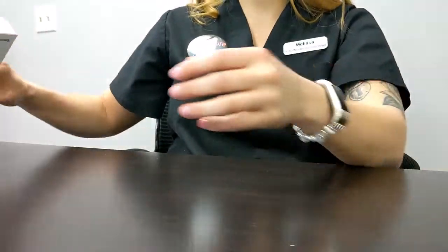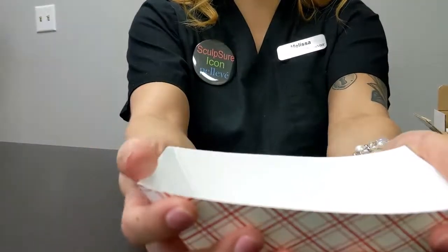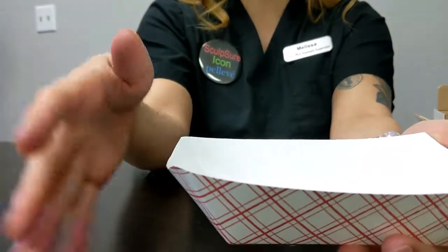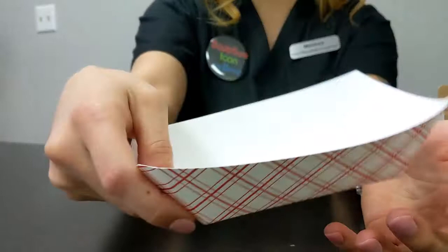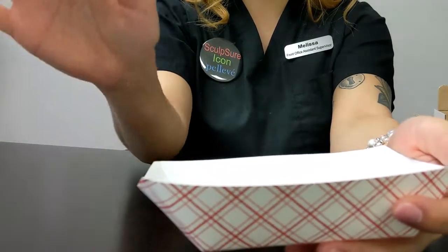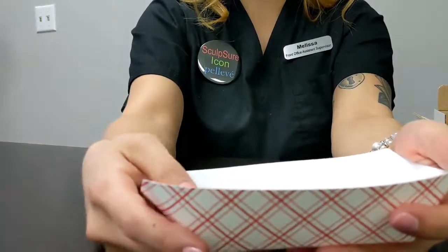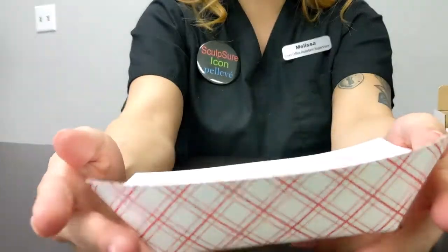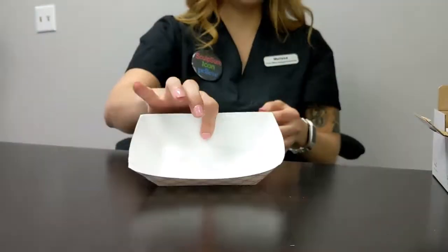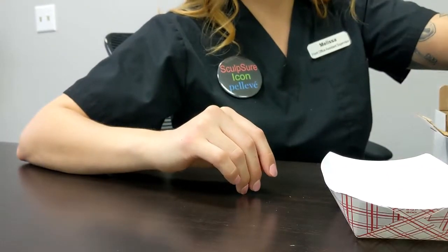So what you will do is you want a clean catch. So you want a stool specimen with no toilet water, no urine, and no toilet bowl contamination. So if you can, try to catch it with this. Some patients will turn the water off in the toilet and make sure it's completely empty, put saran wrap down, and they'll try to catch it that way. Just try to make sure that it does not get contaminated in any way if possible. So once you have a clean catch, you'll be able to get started. So I will work through that with you right now.